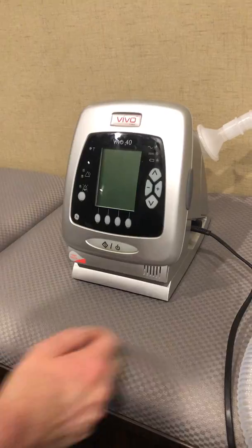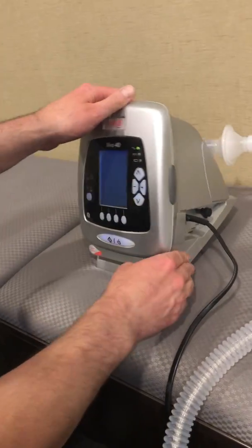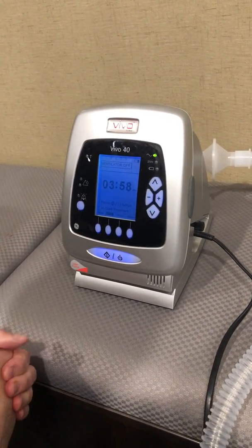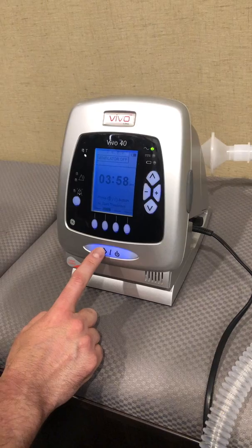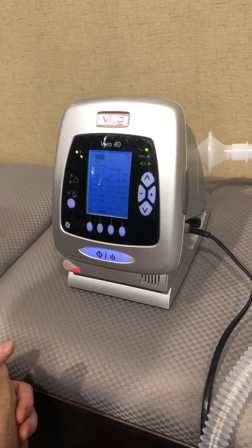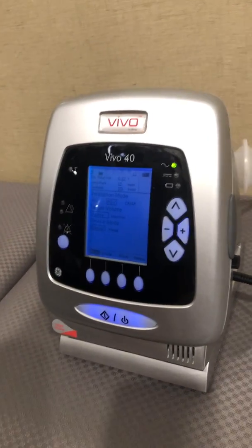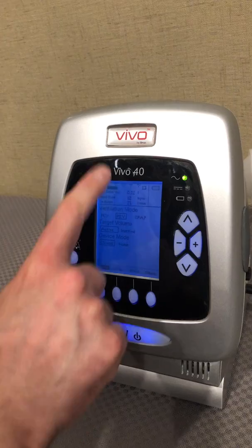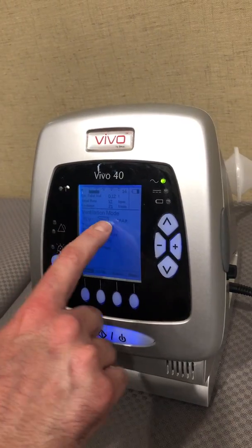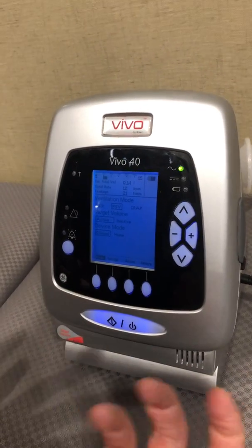With the Vivo 40, I'm going to turn the power on. You'll notice the screen comes on showing the time, but we need to press this button here so we can get into our screen and start going through our settings. I'm going to start off with the mode. You'll see that you have three modes: pressure control ventilation, pressure support ventilation, and CPAP. I'm going to leave it on pressure support ventilation — essentially ST with a targeted tidal volume.